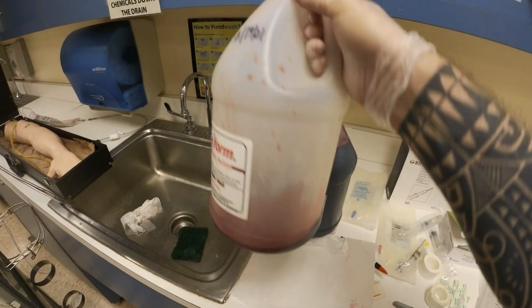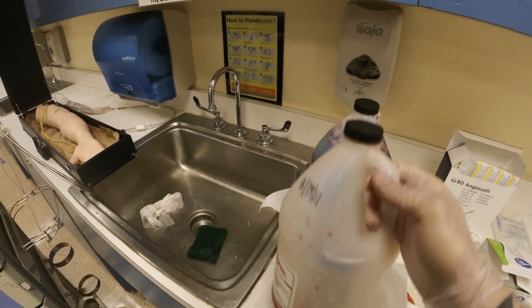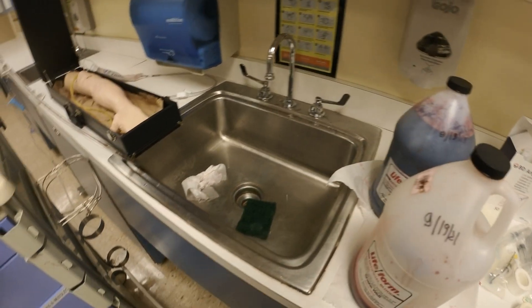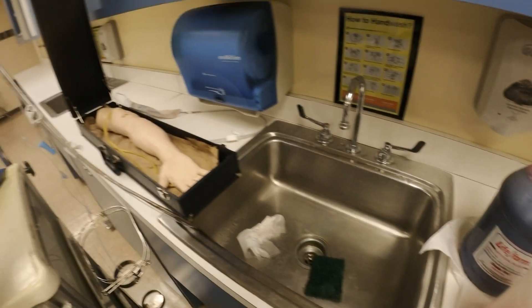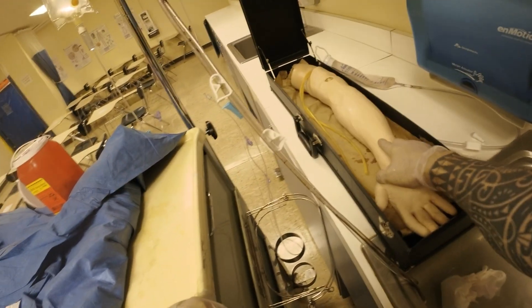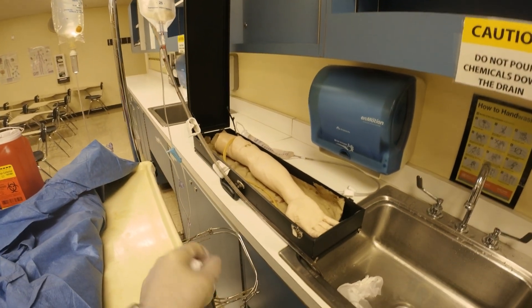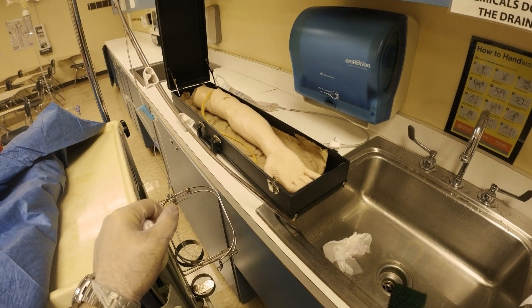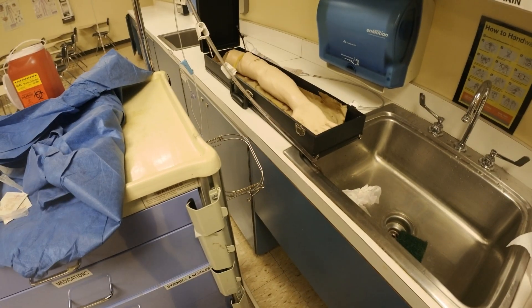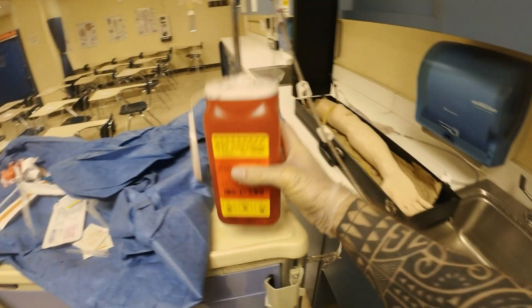When the blood starts to become super light, you can add a more concentrated solution in here. But don't routinely dump the entire contents of your bags — that costs a lot of money going down the drain. A tip: if you connect it and it's pressurized but not running, someone may not have cleaned it properly and there's sediment buildup. Connect both bags and run warm water for several minutes to clean any sediments. Once that's done you're good to go. After this, put all your equipment away. Make sure you trash everything that needs to be trashed. The sharps containers — only put sharps in there, do not put regular garbage in your sharps container.